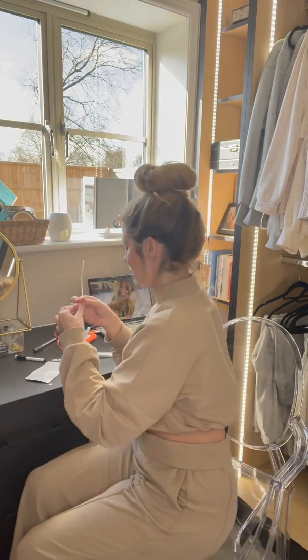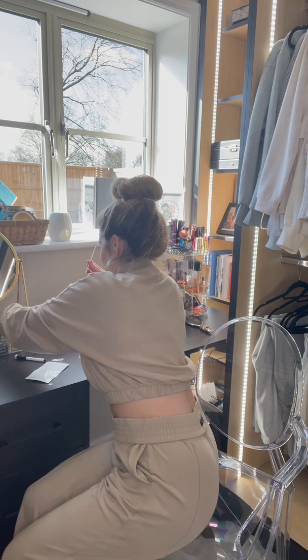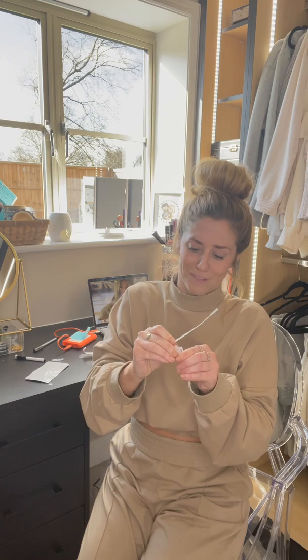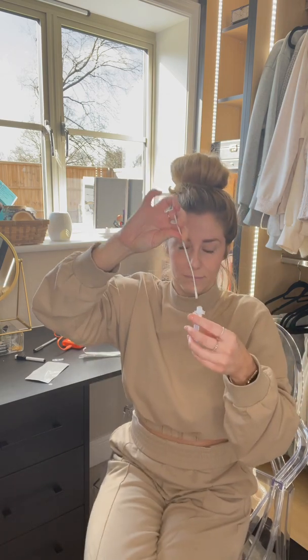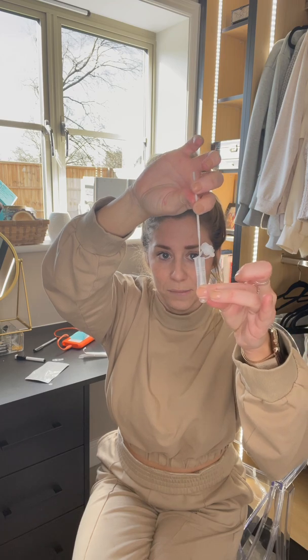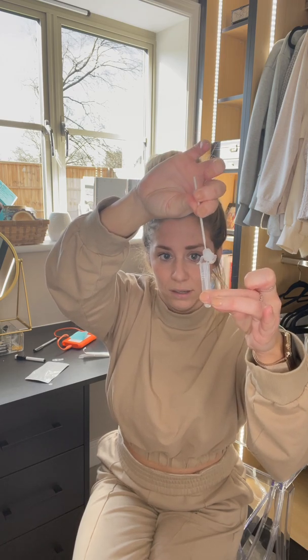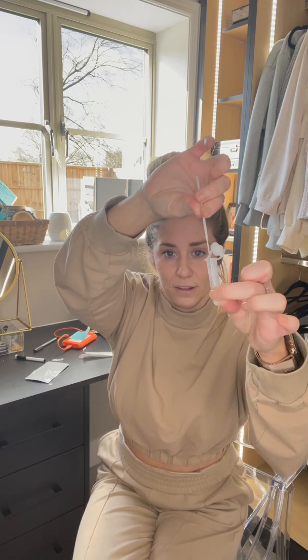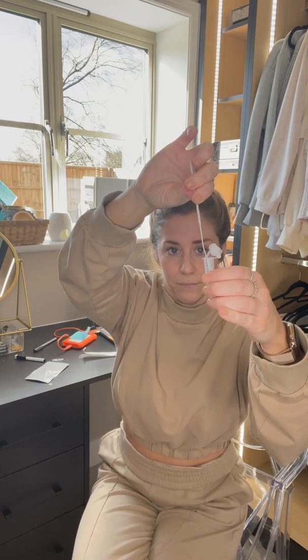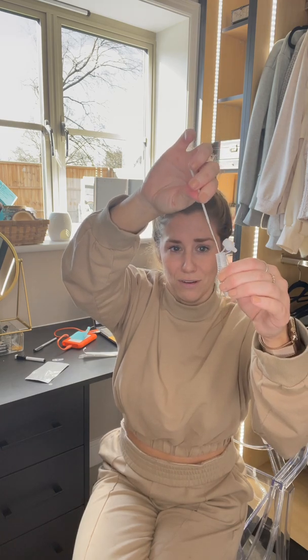Now you want to come in and watch this lovely bit. Doing this on video because — this goes in here. And they say to squish the sides a bit to make sure it's all in there. This is so gross.